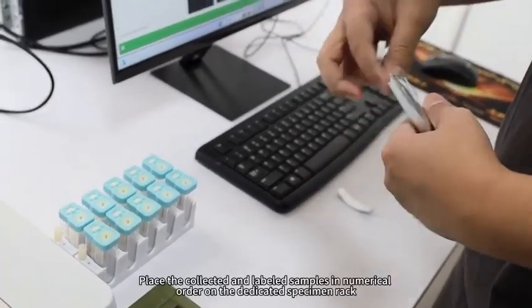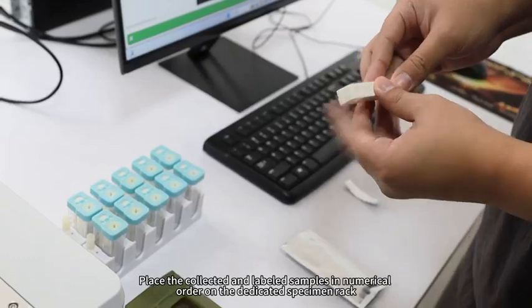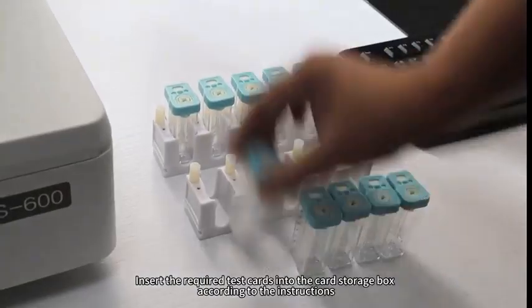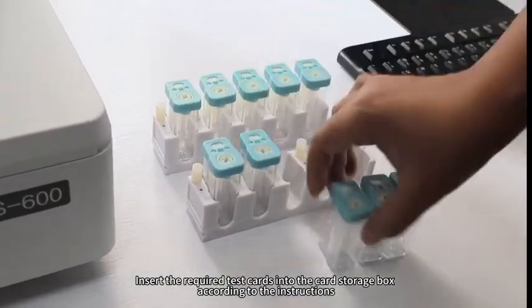Preparation Stage: Place the collected and labeled samples in numerical order on the dedicated specimen rack. Insert the required test cards into the card storage box according to the instructions.